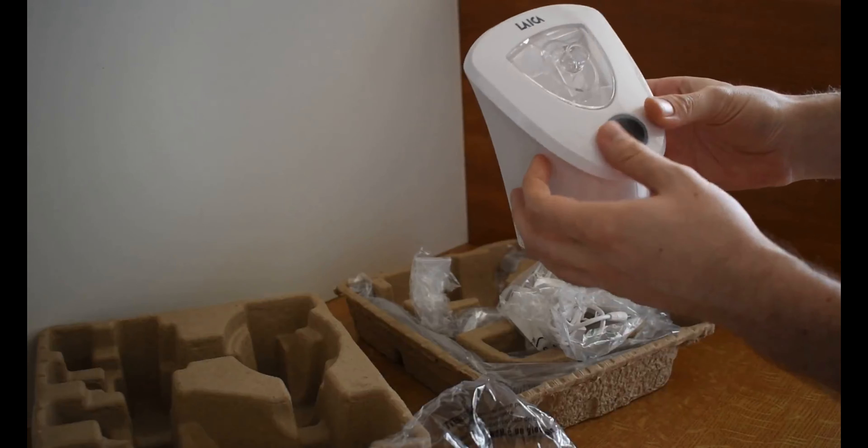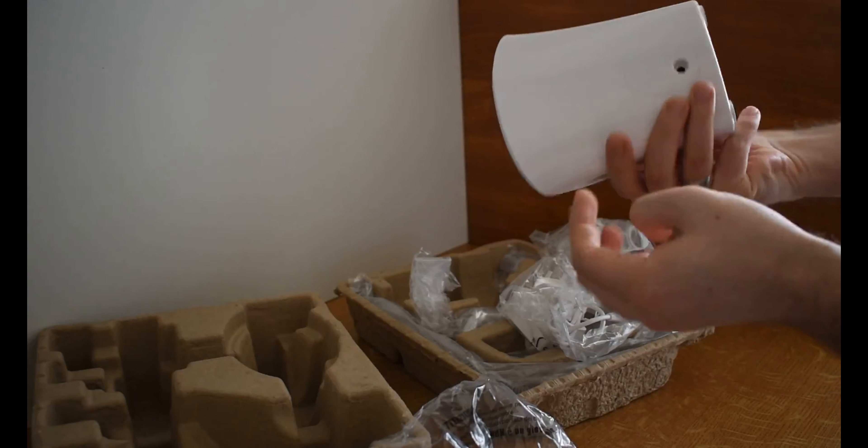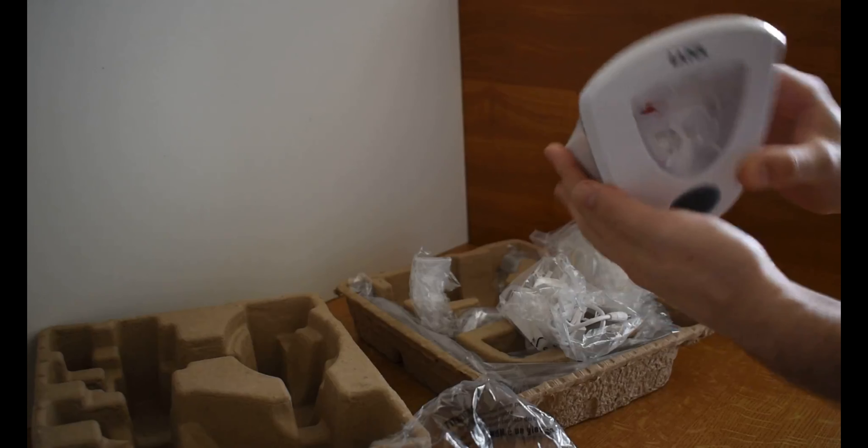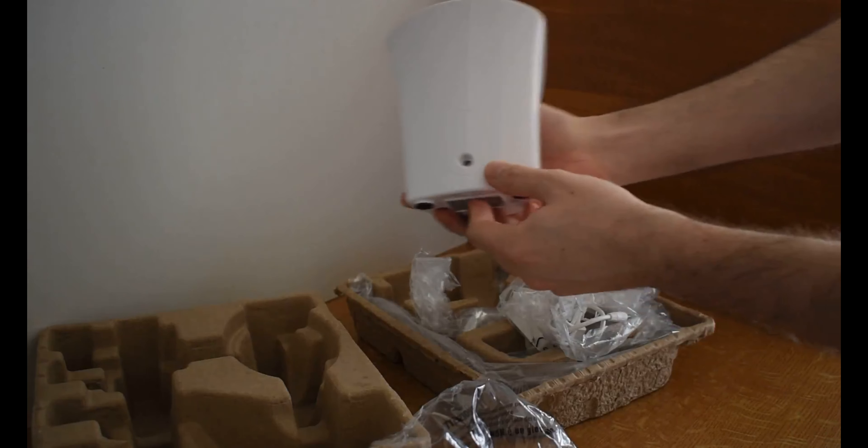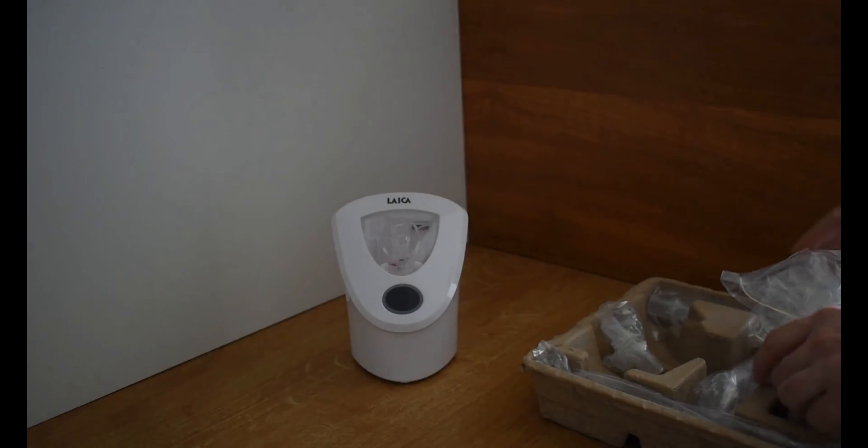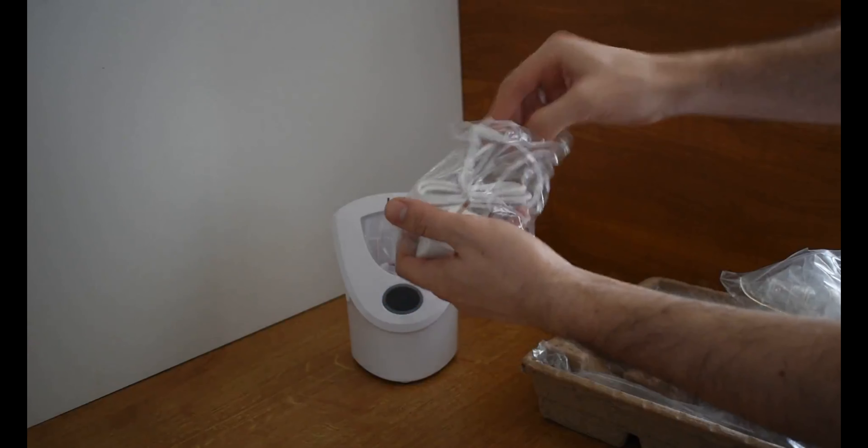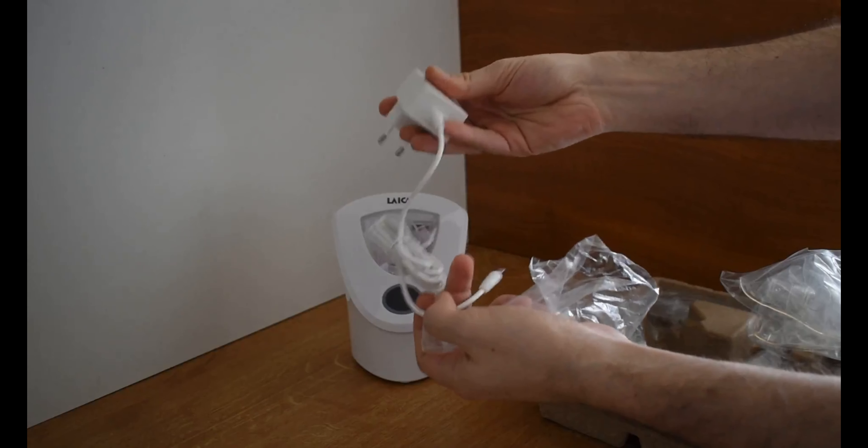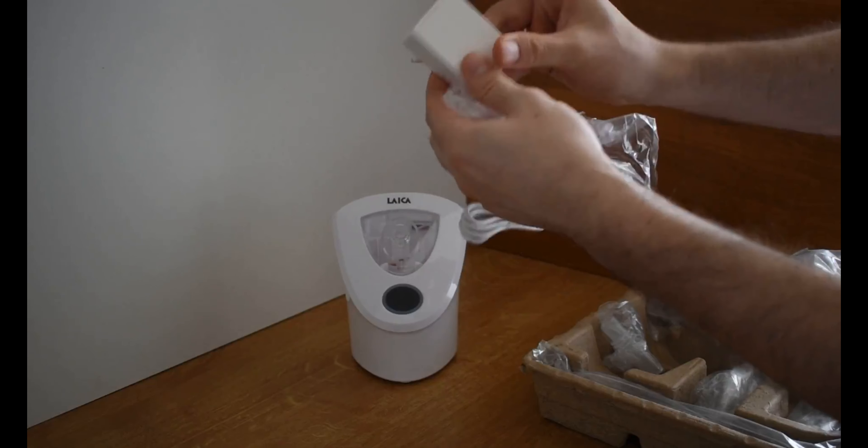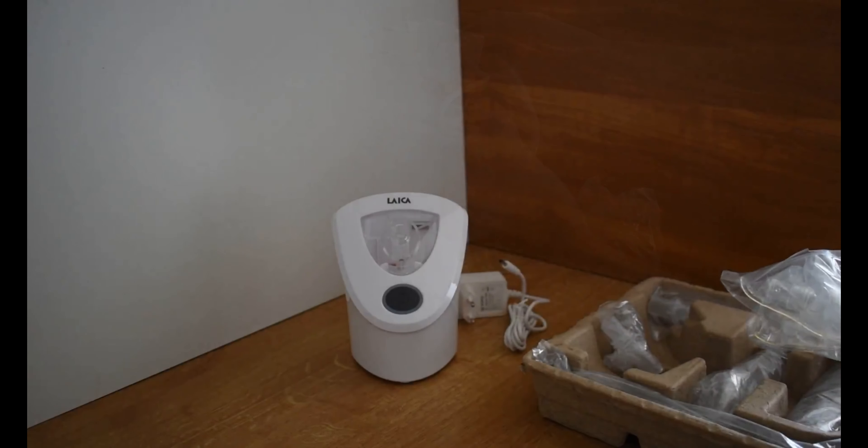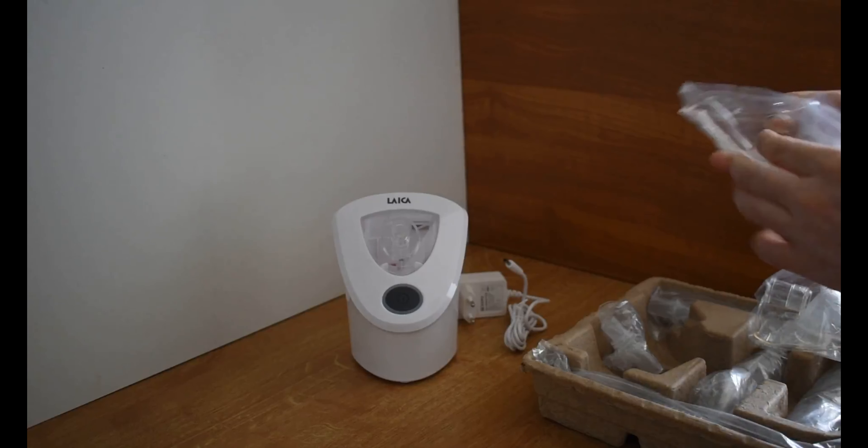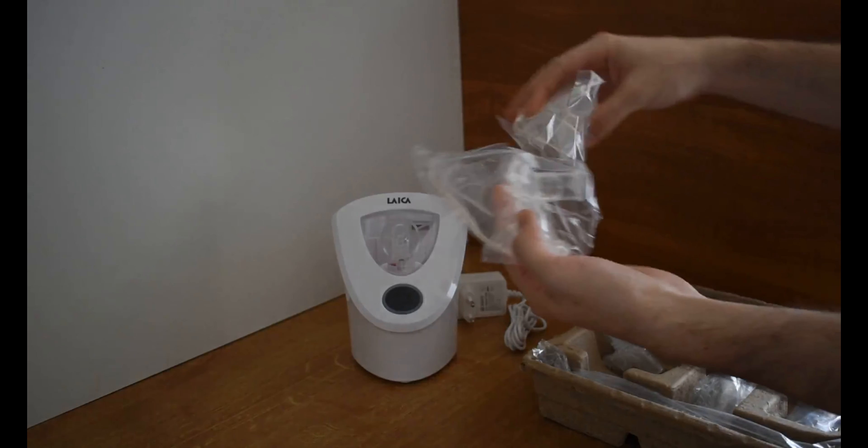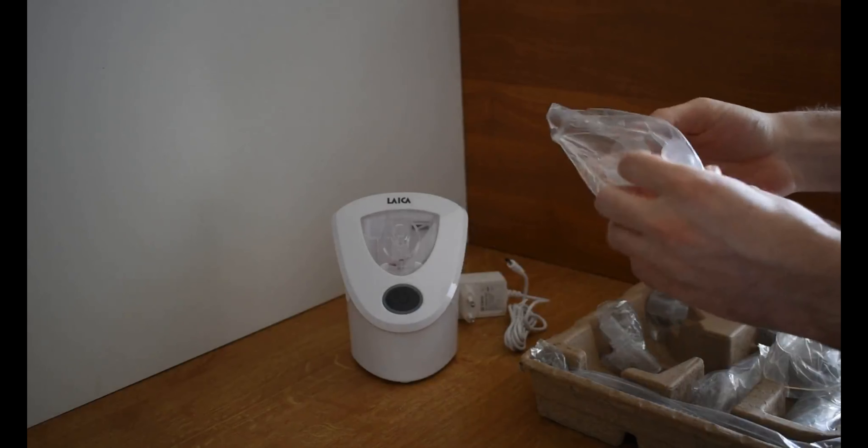And the air tube plug-in place is on the top as well where we can place the nebulizer too. Moving further we have the connector, it's actually pretty nice plastic, it's a good tiny one. And next we have the masks. These are both masks for adults and children.